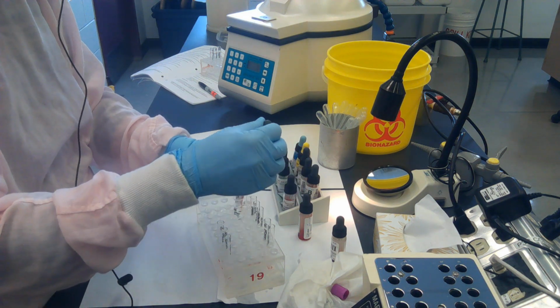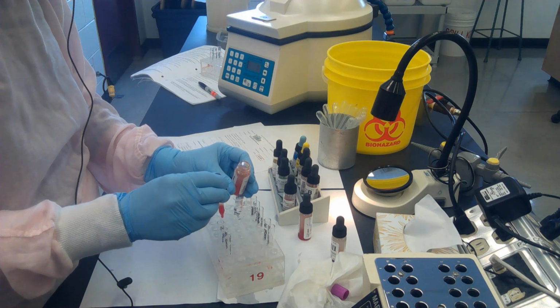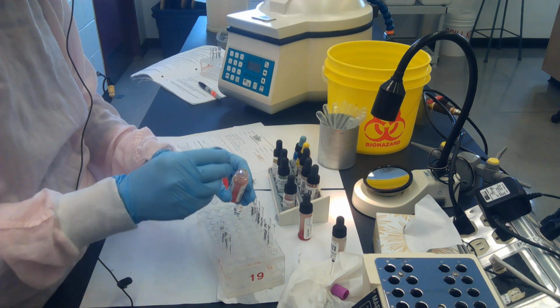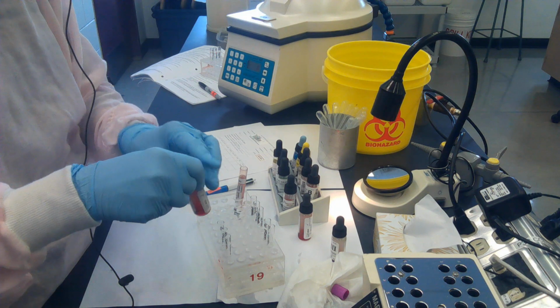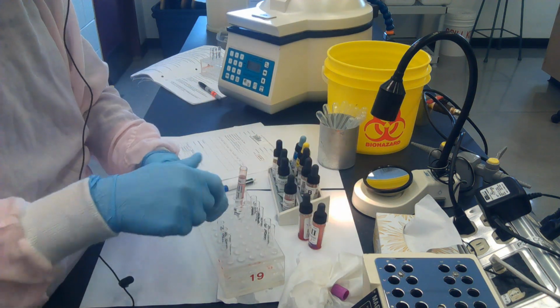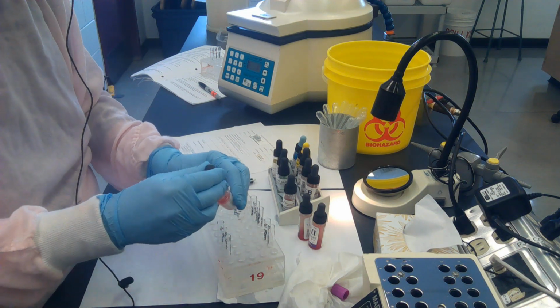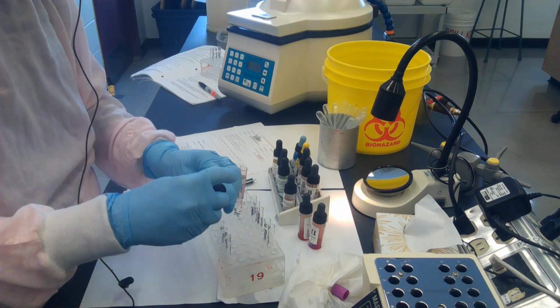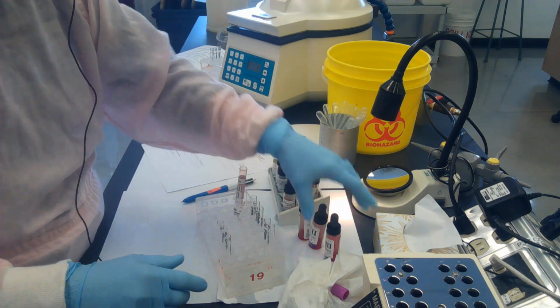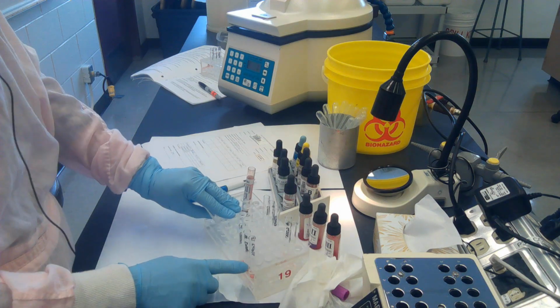Use good technique for pipetting, use good mixing, read the bottle. I read it when I picked it up, screening cell 2. I'm reading it now when I place the drop into the test tube, screening cell 2, and when I put it back away, I read it a 3rd time, screening cell 2. Same with the screening cell 3.